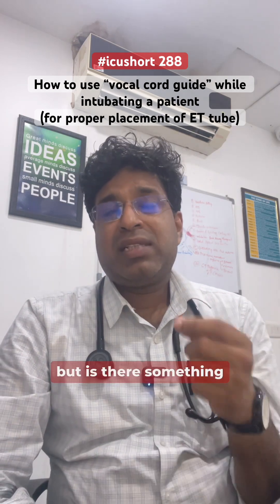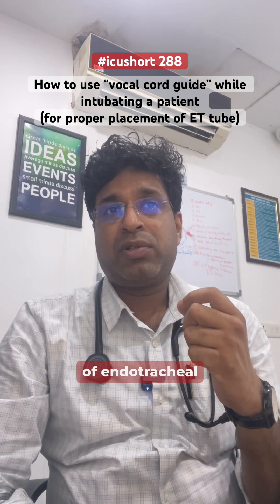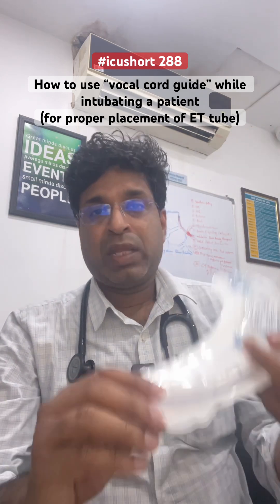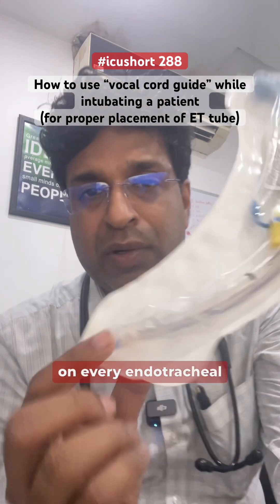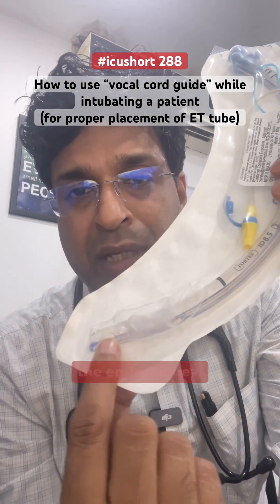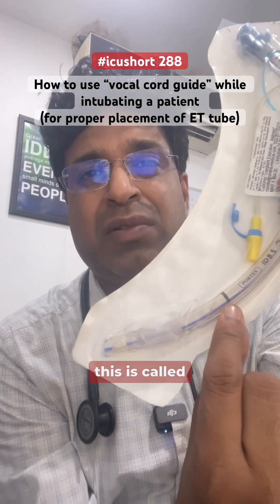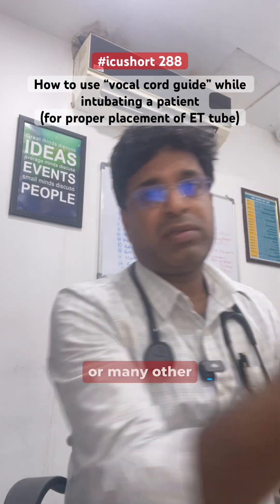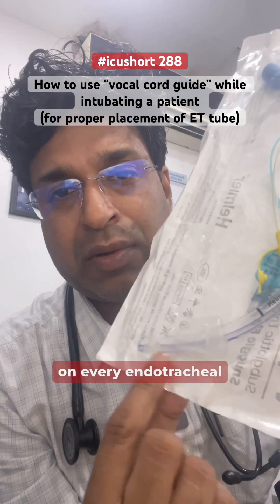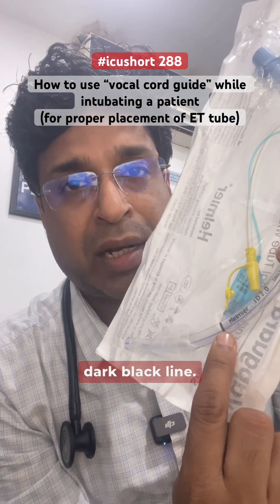But is there something else which can guide us for proper placement of the endotracheal tube while intubating? On every endotracheal tube, from the tip, there is a black marking. This is called the vocal cord guide, among other terms. On every endotracheal tube there is a dark black line.